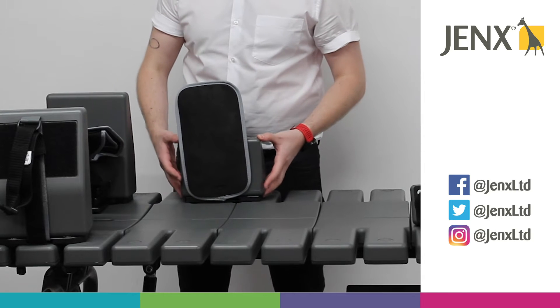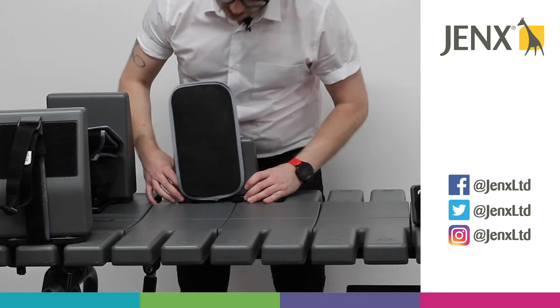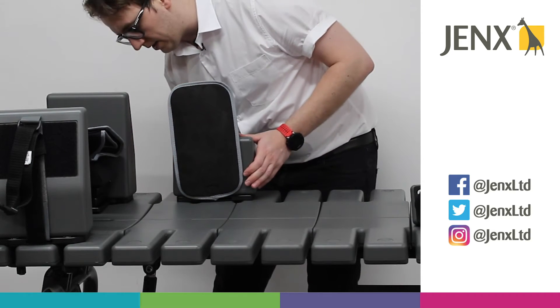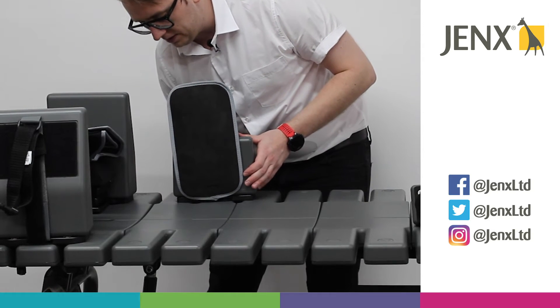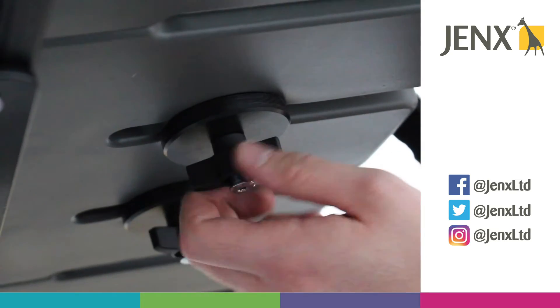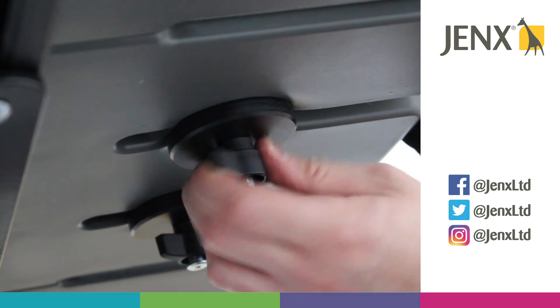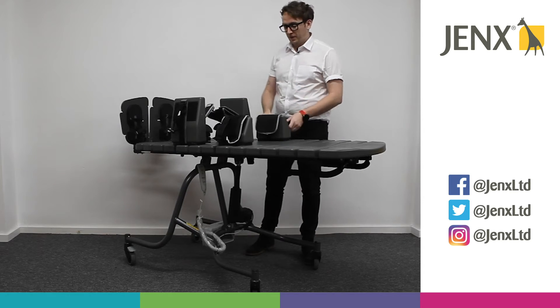The pad also has movement up and down and can also be angled to accommodate any skeletal issues. Once you've found the place where you would like the hip pad to remain, we can then tighten the hip pads with the wing knobs underneath to secure them into place.